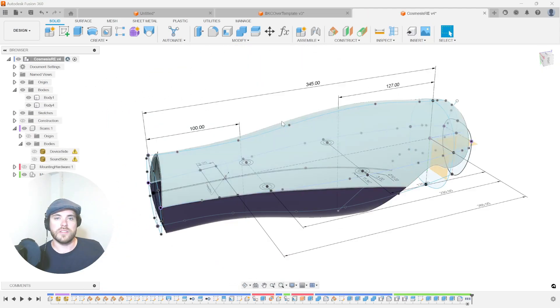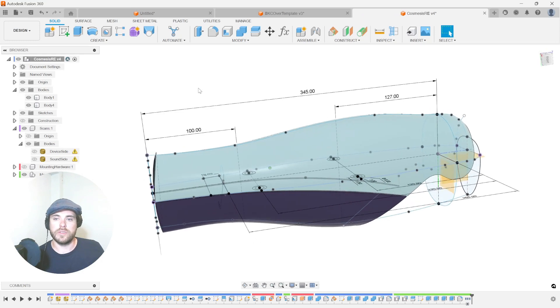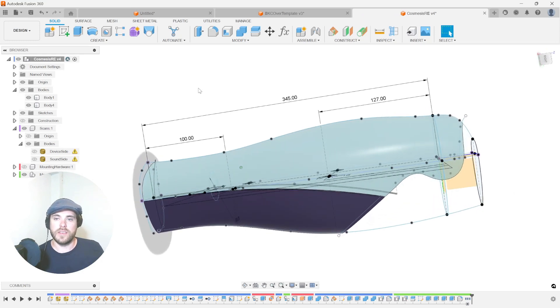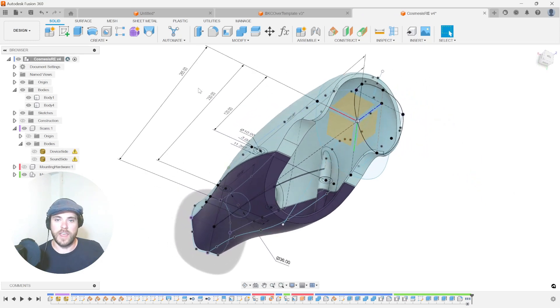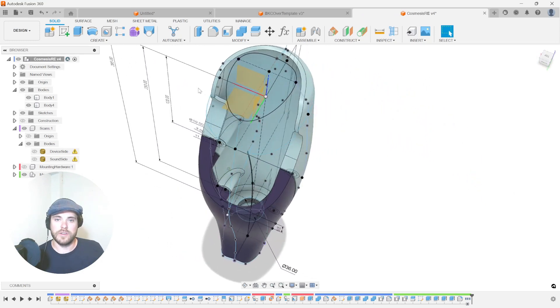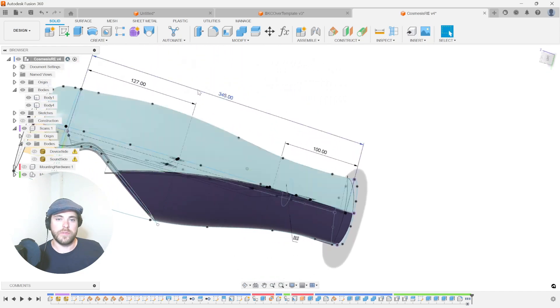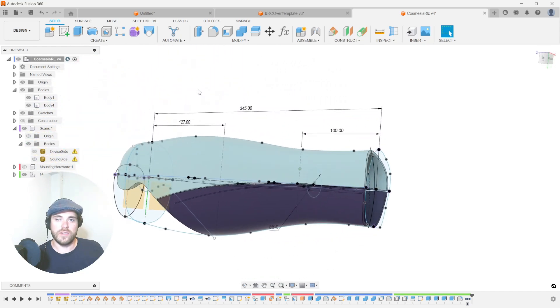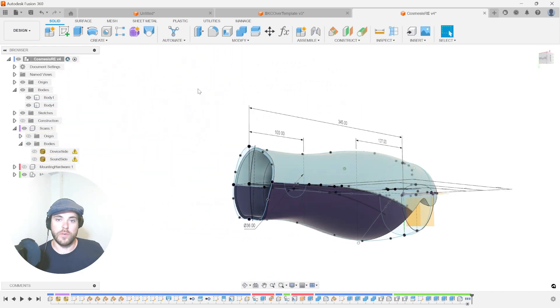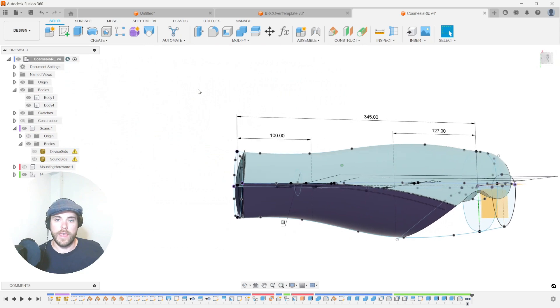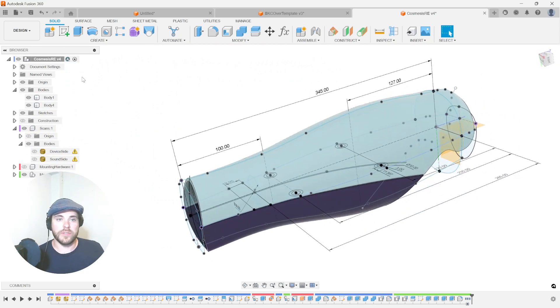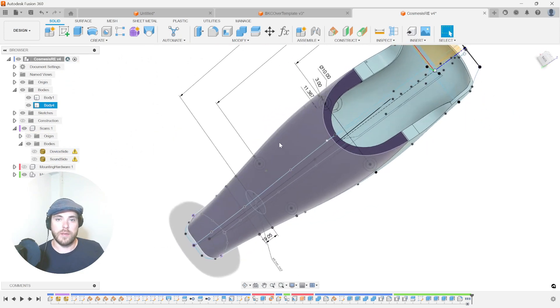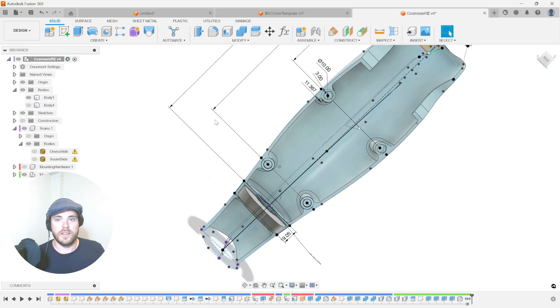Here's the other example of the product that you would build in this course. This is a very classic AK cover. This would be fitting a standard C-leg, maybe a C-leg 3, C-leg 4. And you have spent the time going through this course, building out this template.